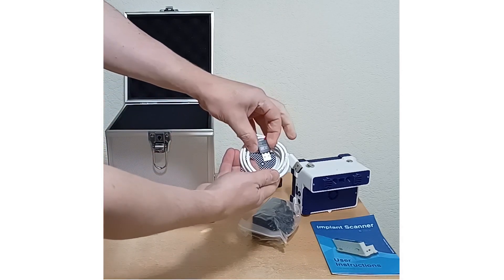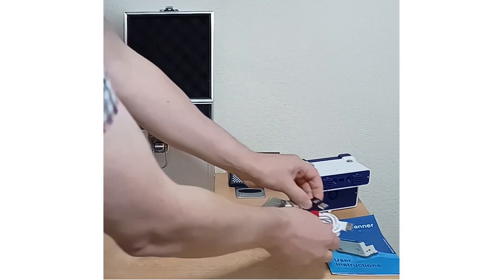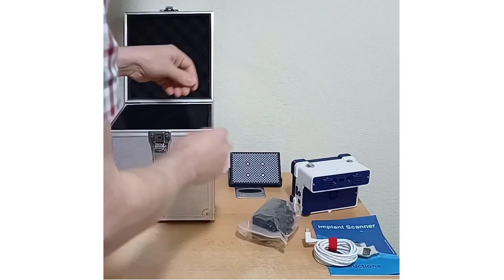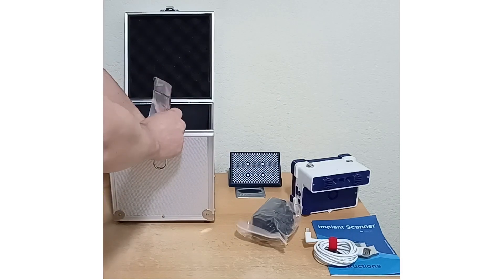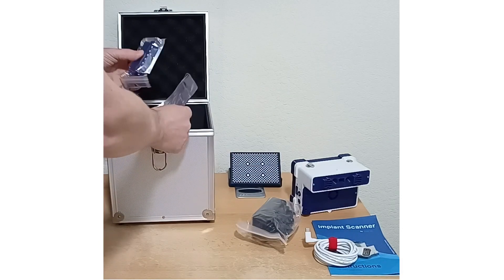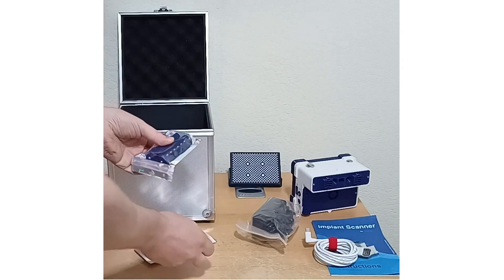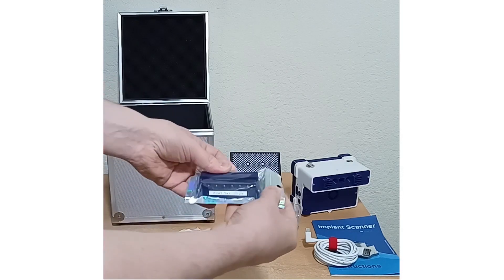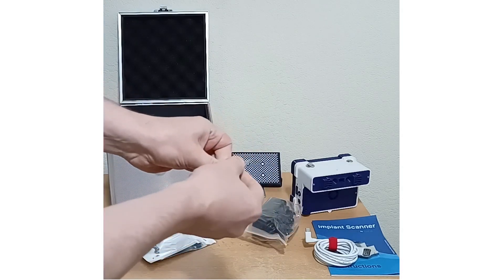This is the USB cable, 2m long, and a WiFi dongle, just in case your computer needs it. The scanner is WiFi; the USB is just a backup.